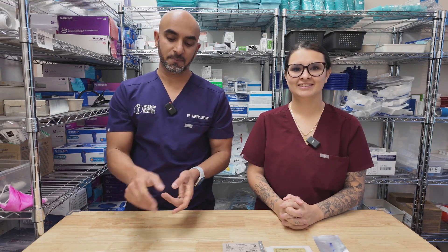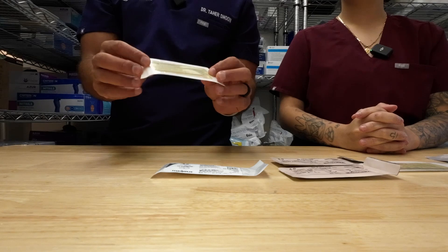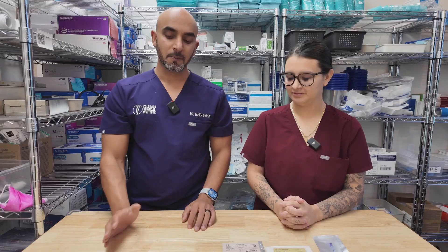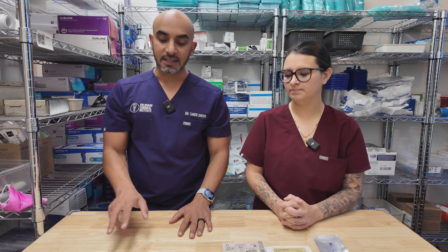We're going to talk about some suturing. We have our old but tried and true chromic. You can do 4-0 or 3-0. Indications for chromic are mainly going to be wisdom teeth — that's the main one. A lot of docs are doing it in full arch as well.